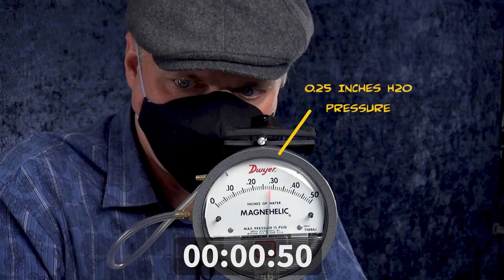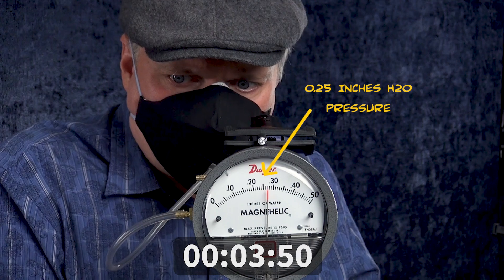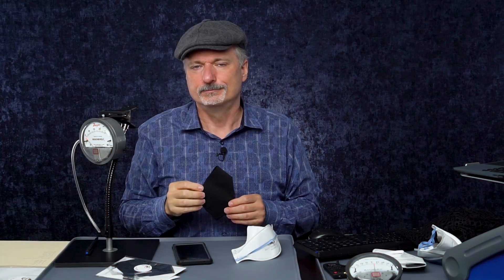This is not an absolute measurement because my lung volume is not the same as Aaron's, so I can't compare readings directly, but I can compare my own readings between different masks. I have a stopwatch here. I'm going to measure this mask four times and average them. Now it's time to test the 3M Aura all on its own and see if it is more breathable.